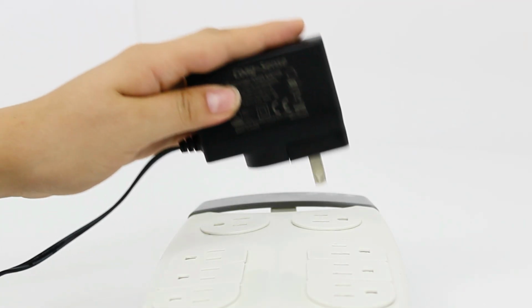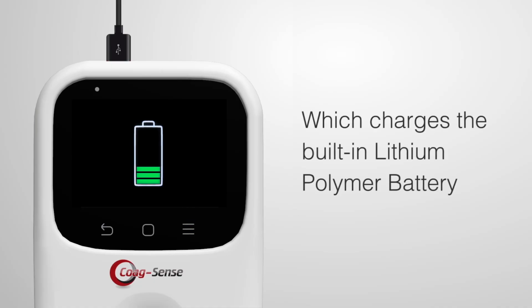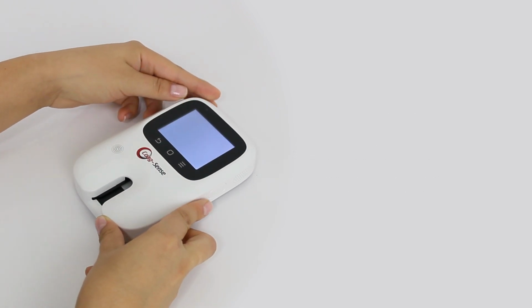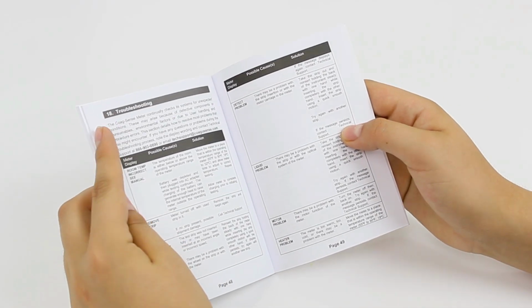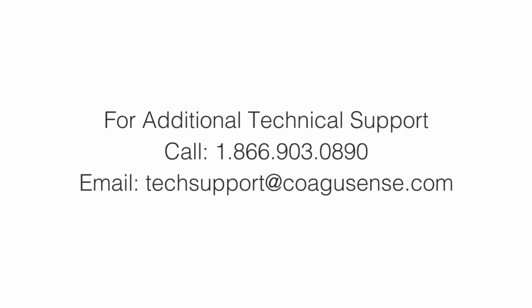The meter can be operated with a power adapter provided in the system, which charges the built-in rechargeable lithium polymer battery. The meter performs a self-test when it is first powered on. If there's any problem with the meter, an error message will be displayed. For a complete list of error messages and their troubleshooting, please refer to the troubleshooting section in the user's manual or contact technical support.